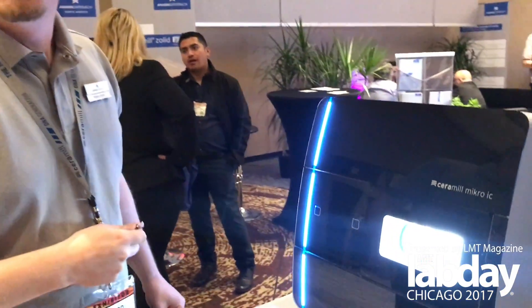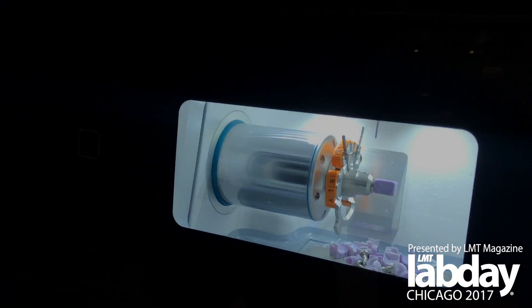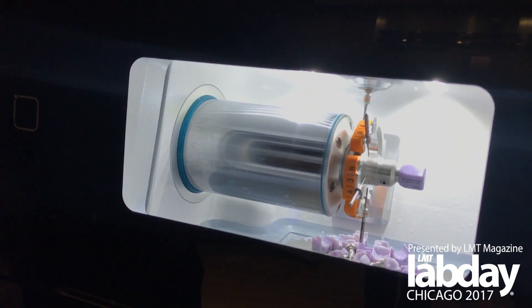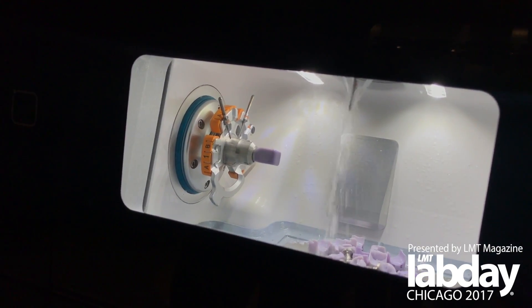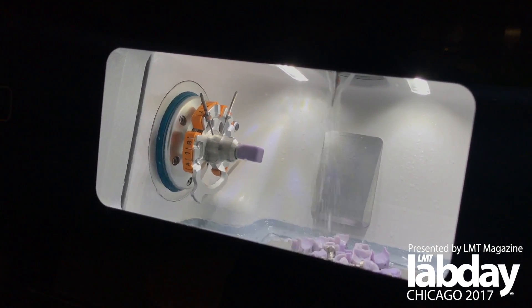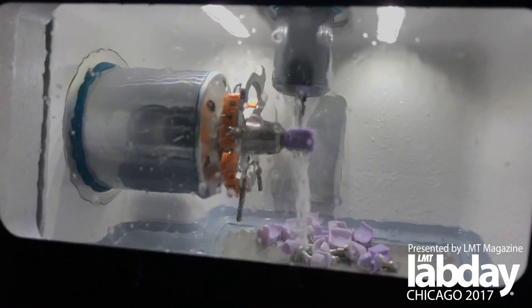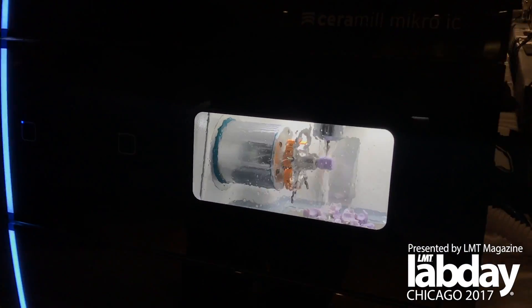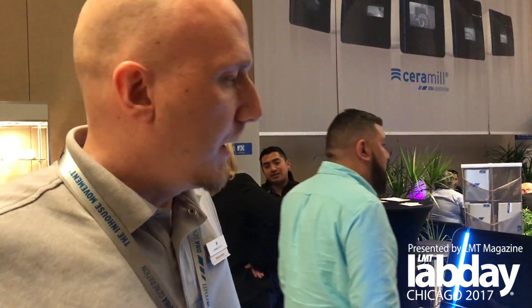I'm going to start the program for you and show you how this looks like. In the first two minutes it is cutting off the residual part of the emax block, and then in the remaining minutes it is finishing the unit down.